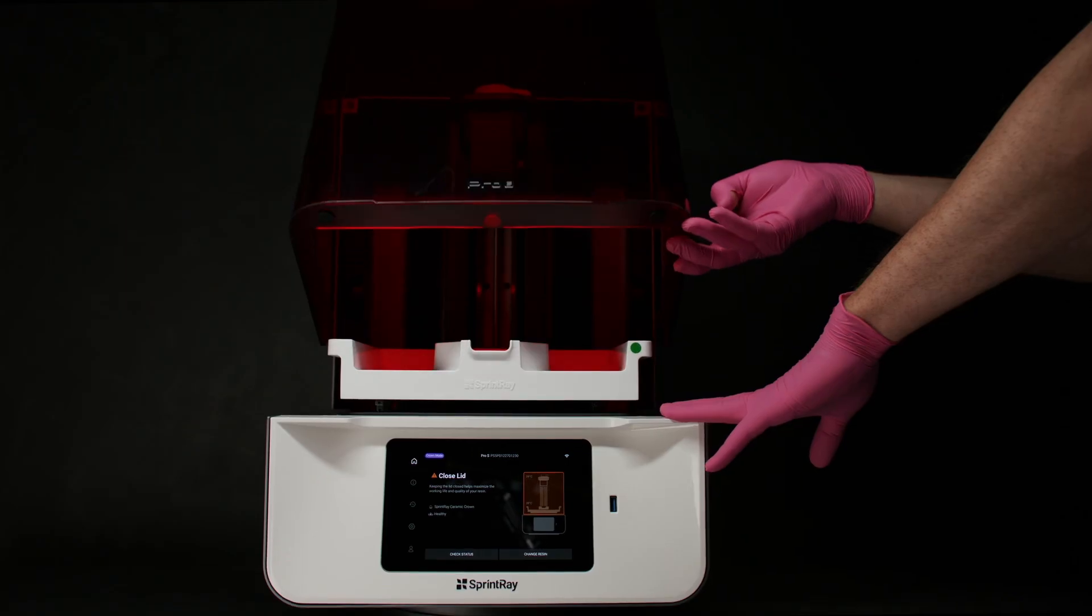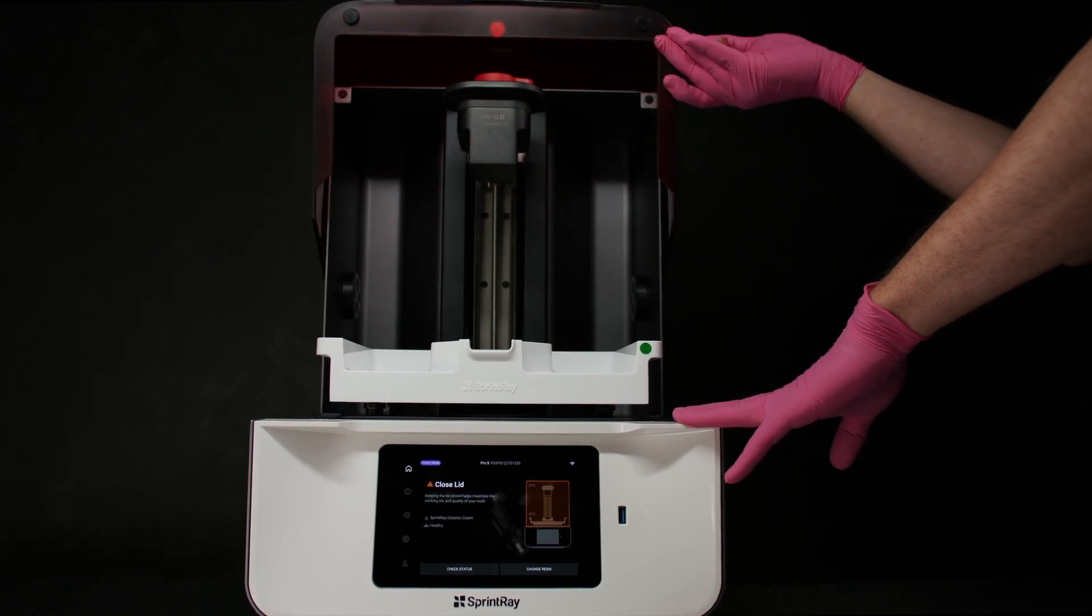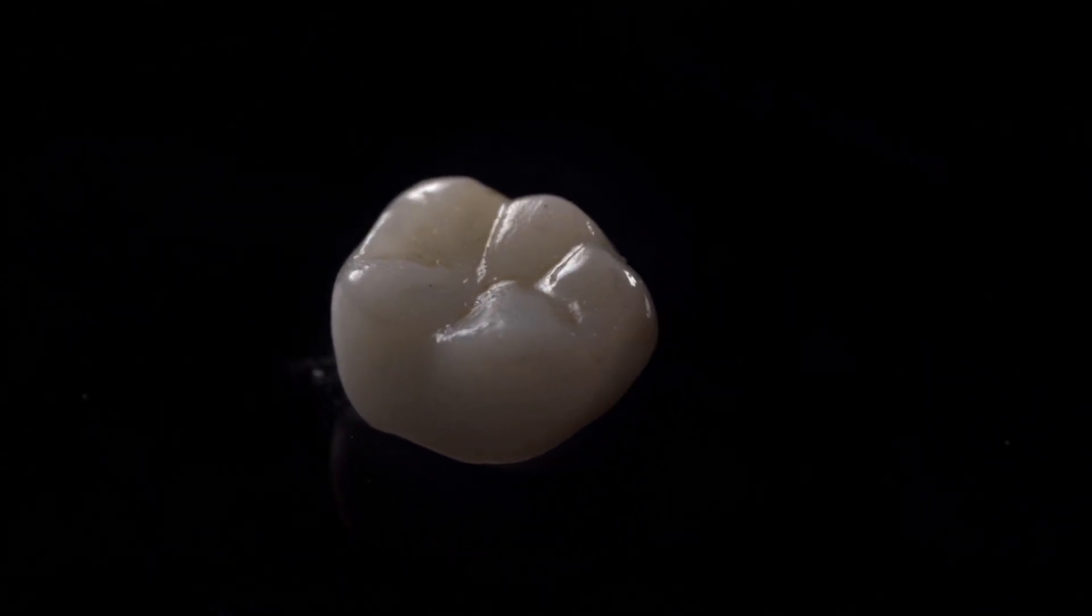The crown kit you have in front of you represents a new era of care in dentistry. I have been 3D printing definitive inlays, onlays, and crowns for over three years now.